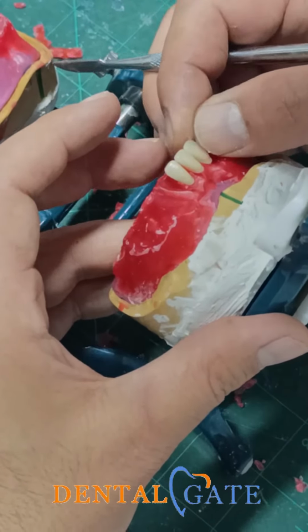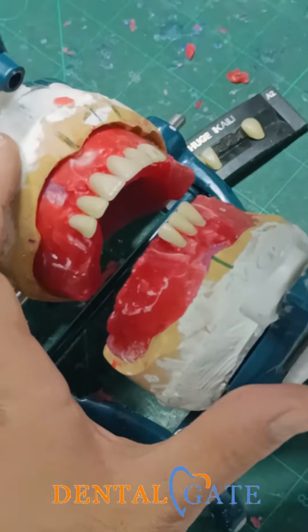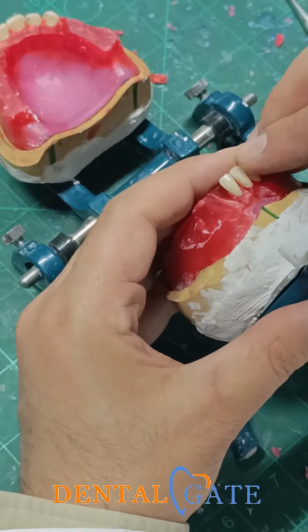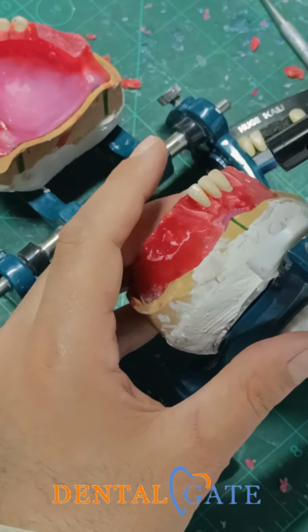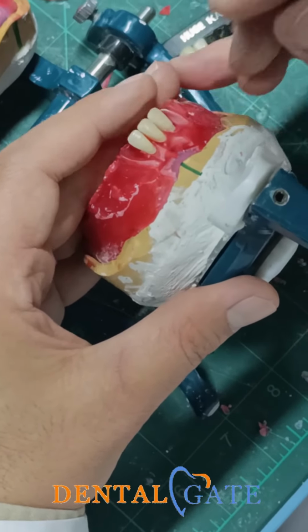Be sure the contact area is good. Now, you can make a tiny inclination, but for the distal, don't make it. Just put it vertical. You can add this feature for the aesthetic, but my aspiration now is to put the tooth in the normal position, okay?